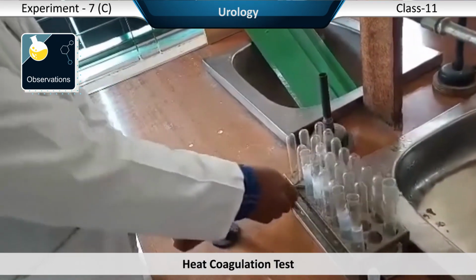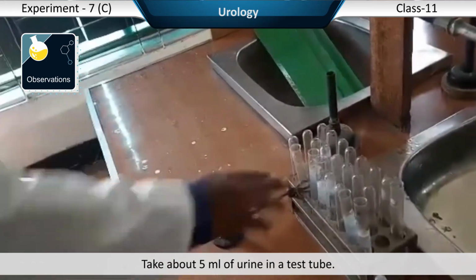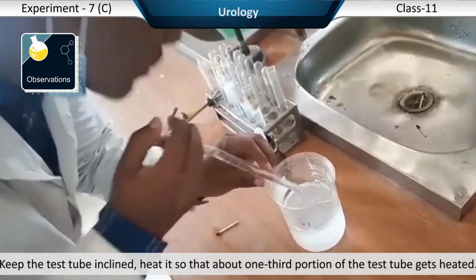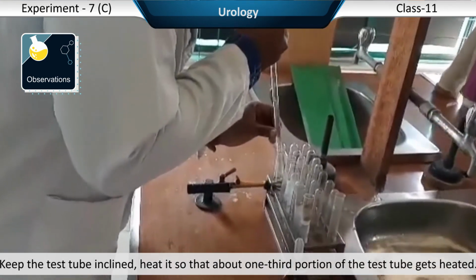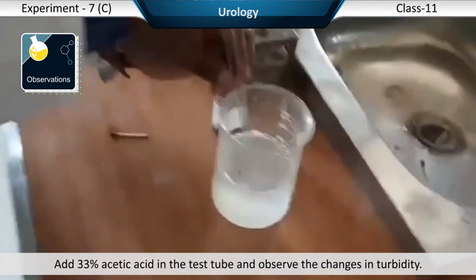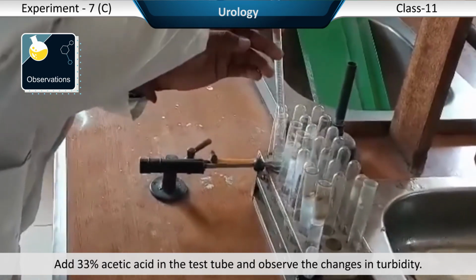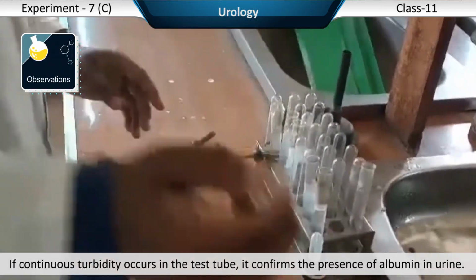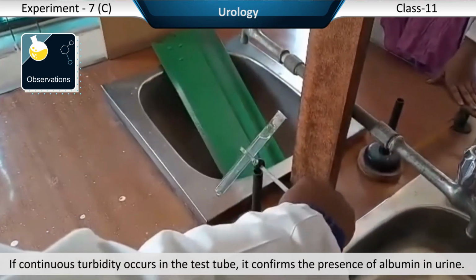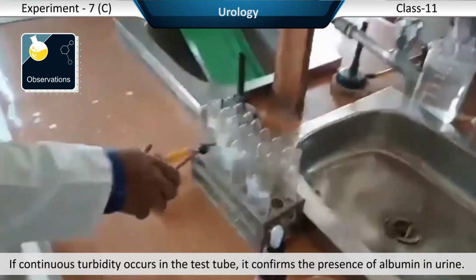Heat coagulation test. Take about 5 ml of urine in a test tube. Keep the test tube inclined, and heat it so that about 1/3 portion of the test tube gets heated. Observe for turbidity. Add 33% acetic acid in the test tube and observe the changes in turbidity. Observations. If continuous turbidity occurs in the test tube, it confirms the presence of albumin in urine.